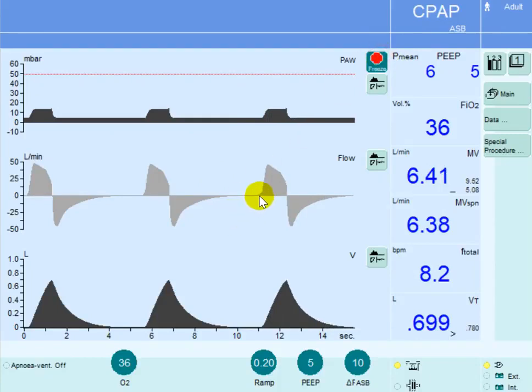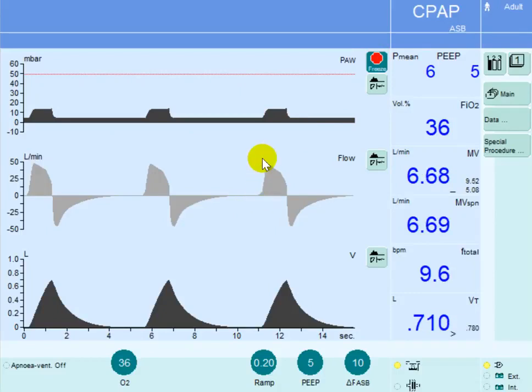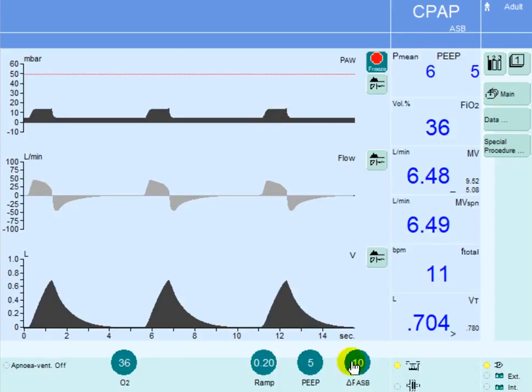This is the initial rise of the flow that is due to patient's efforts. He reached the threshold at this point and then the pressure is increased from the PEEP level of 5 to the level of 15 after adding 10 centimeters of water.